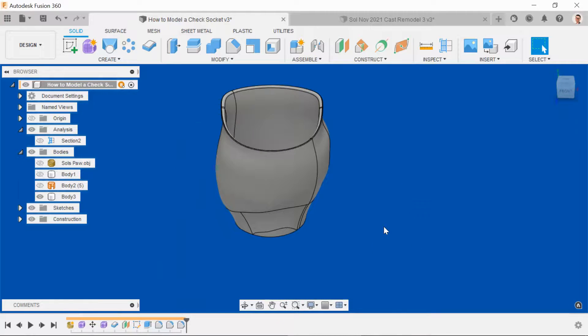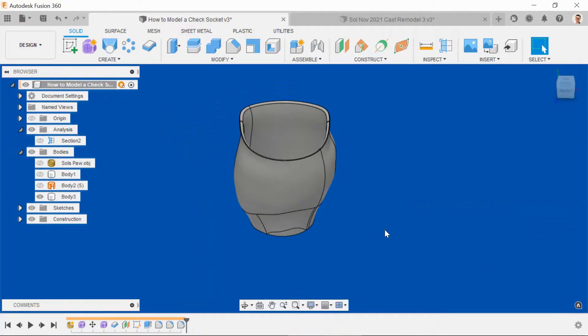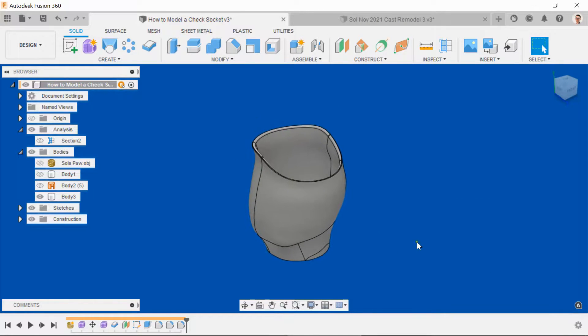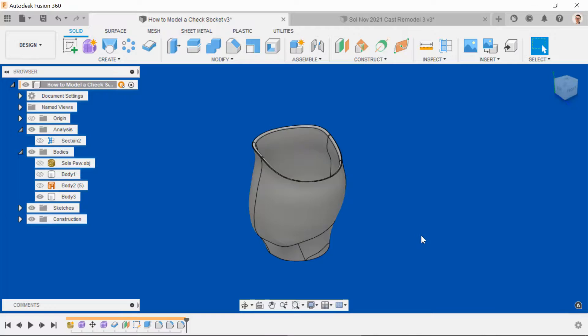Check sockets are best printed in transparent PLA or PETG. It helps to diagnose where the tissue is pushing against the socket. To assist, you can also drill holes in areas of concern and use a cotton bud to probe the resistance from the soft tissue, indicating whether you can go tighter or whether you need to back off slightly.